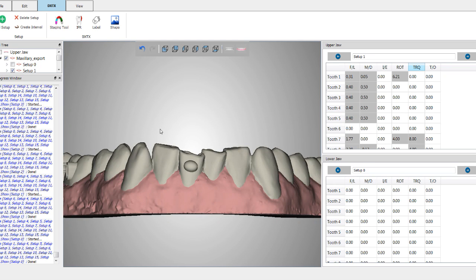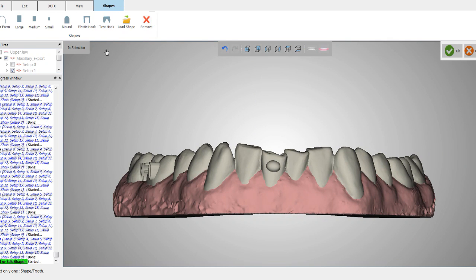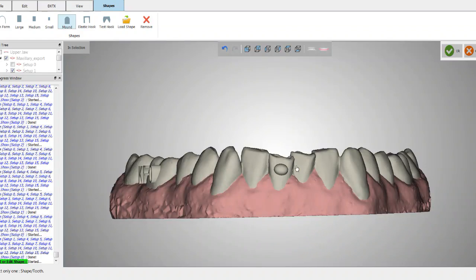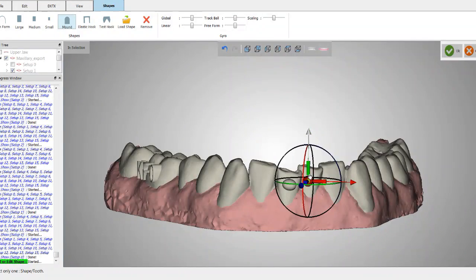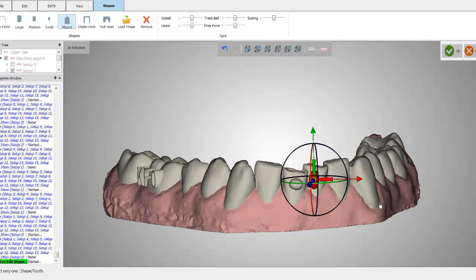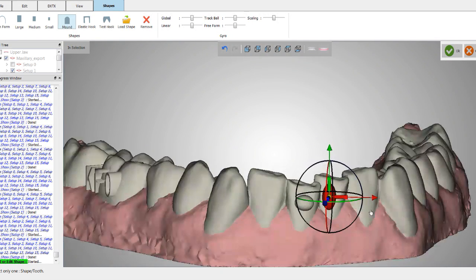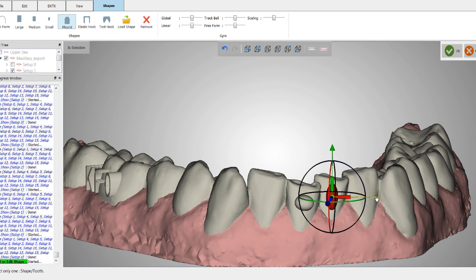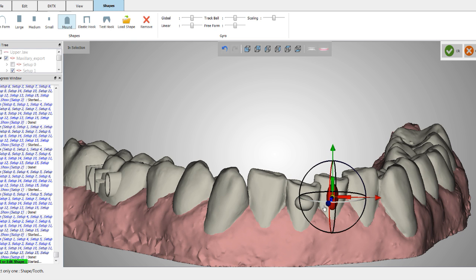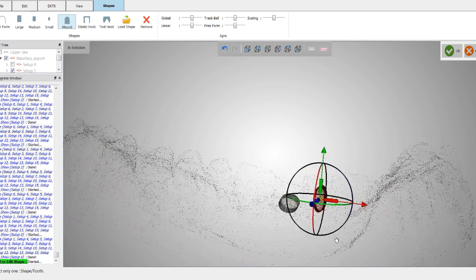So we're going to zoom in, I'm going to click on the shape tool, use the mound shape, I'm going to click right in the center of that tooth, and I'm going to make a vertical attachment. And I'm going to slenderize it here a little bit. And I'm going to move it over. That way there is as much surface area as possible for the plastic to wrap into there and actually grab onto the edge of the tooth.